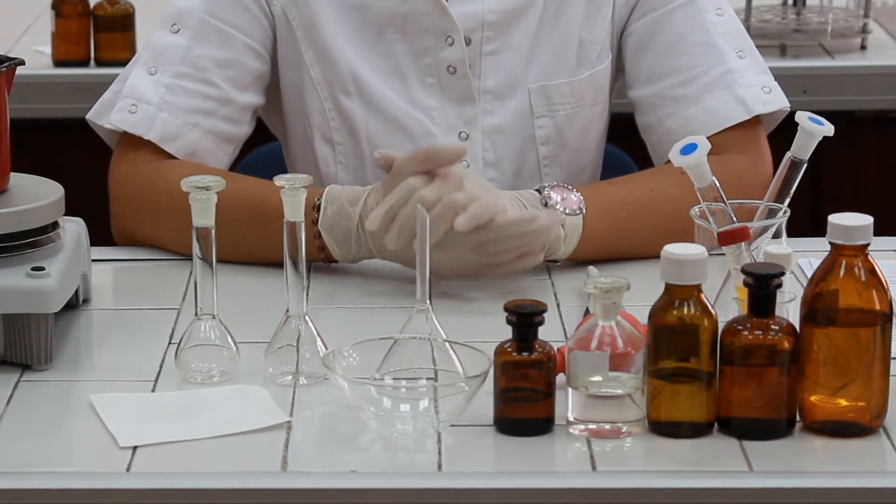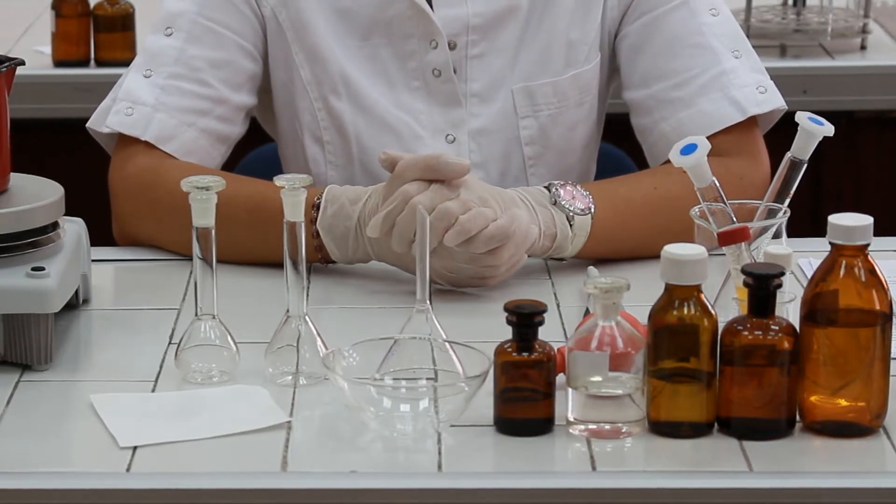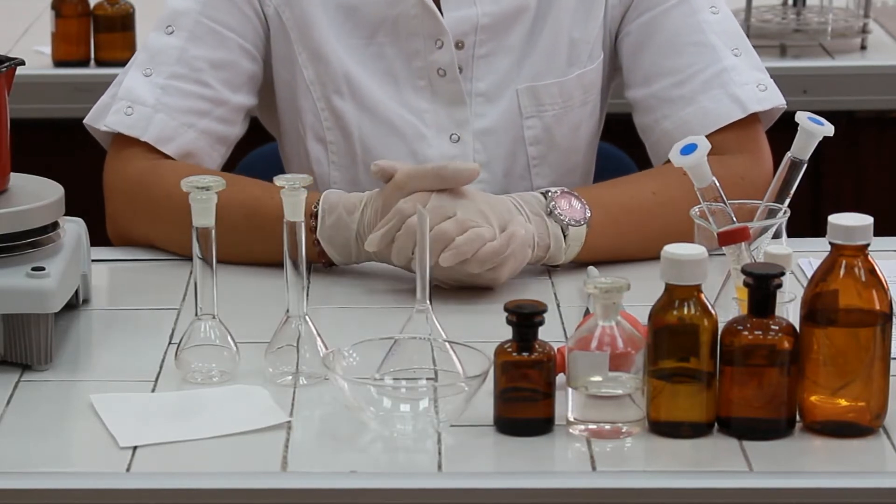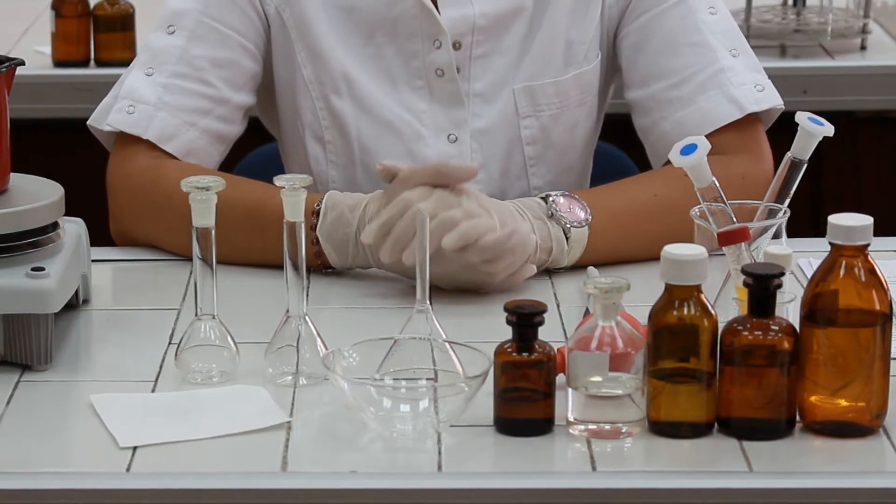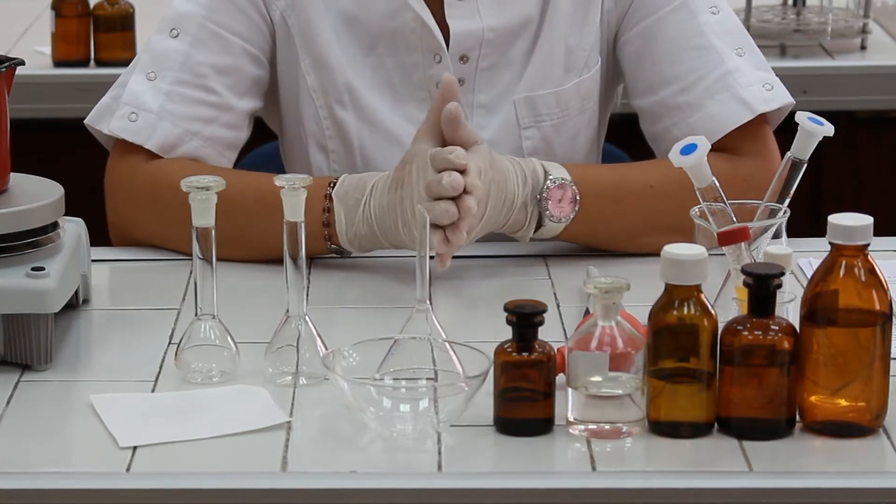Determination of total cholesterol from blood samples. We are going to perform the chemical method based on the colored reaction called Lieberman-Burchard reaction.